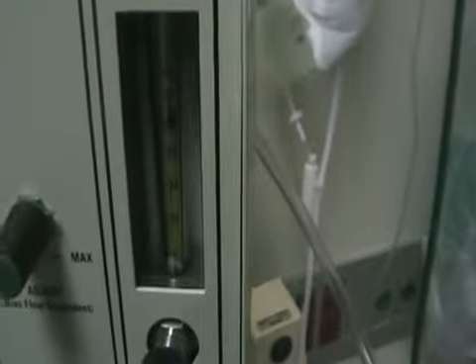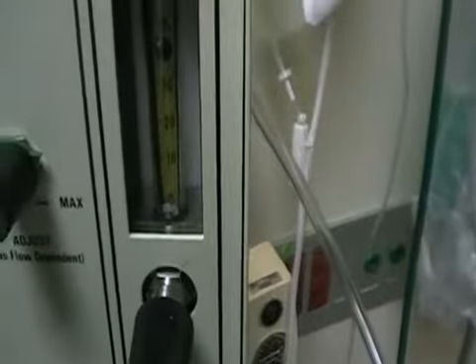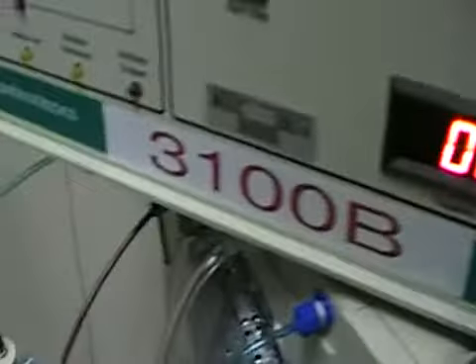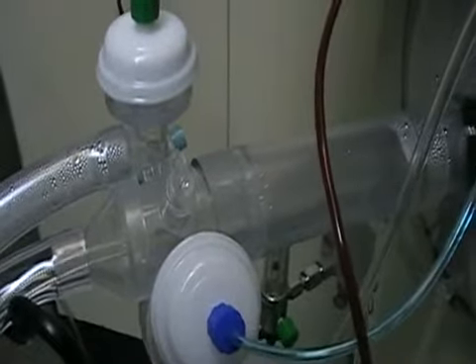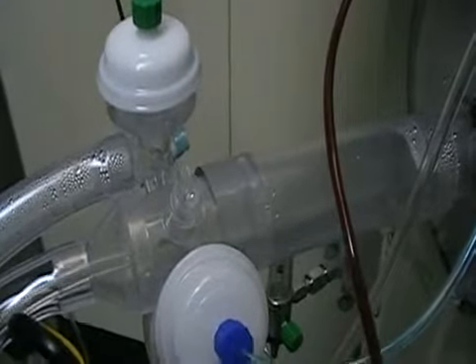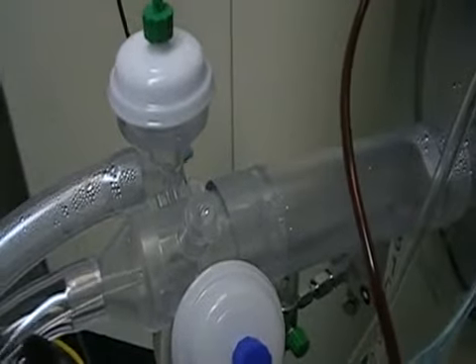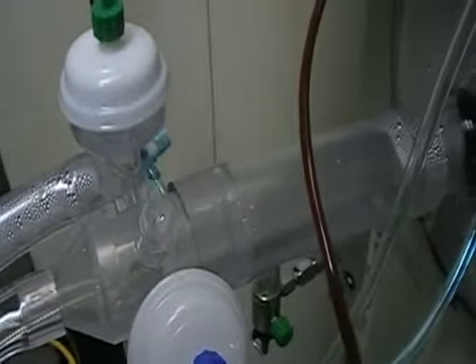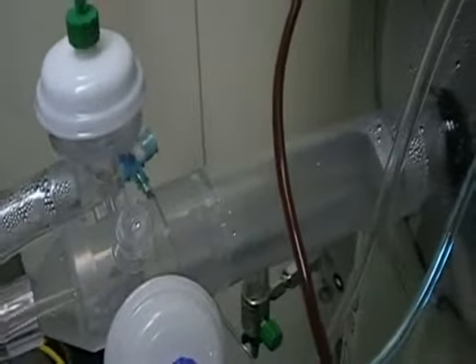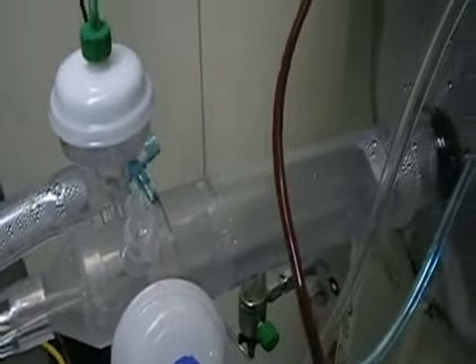The next thing we have is our bias flow, and that's the flow that provides the circuit pressure. It's dialed in here; we typically start it at 30 to 40 for an adult. Let's talk about the mushroom valves — those are controlled by the mean airway pressure knob and supplied by the gas flow from the bias flow. As we increase the mean airway pressure, we seal off these valves that are located in here. The higher we go up on the MAP, the more we seal them off; conversely, the more we decrease the MAP, the more we release pressure. That's what creates the pressure in the lungs.